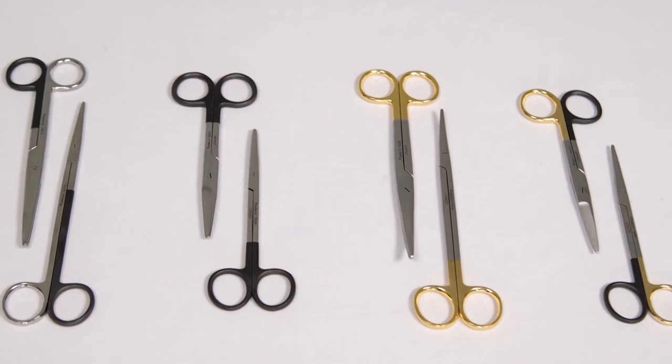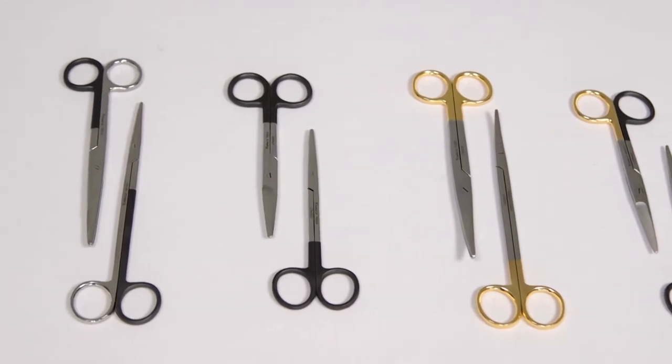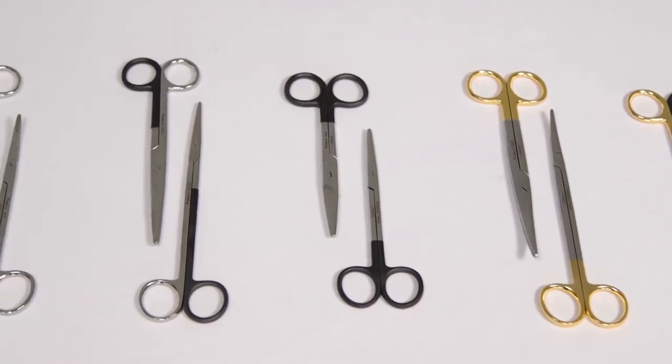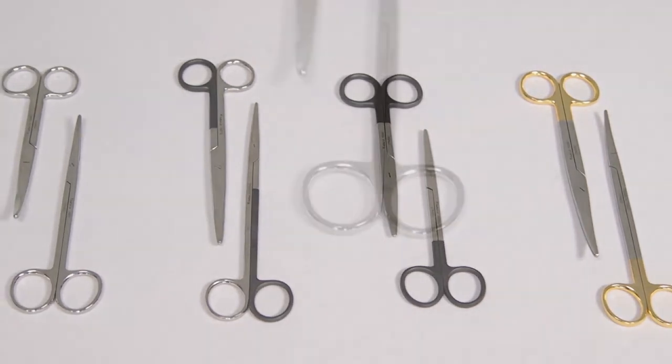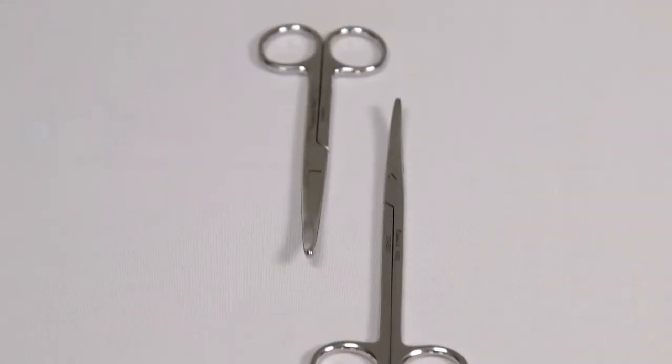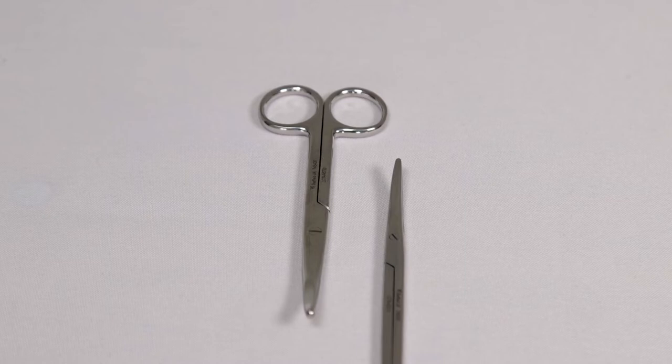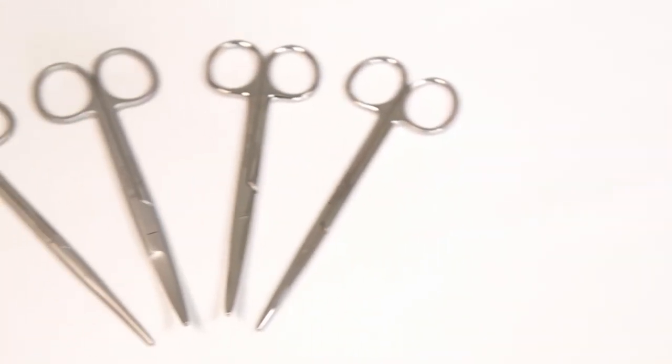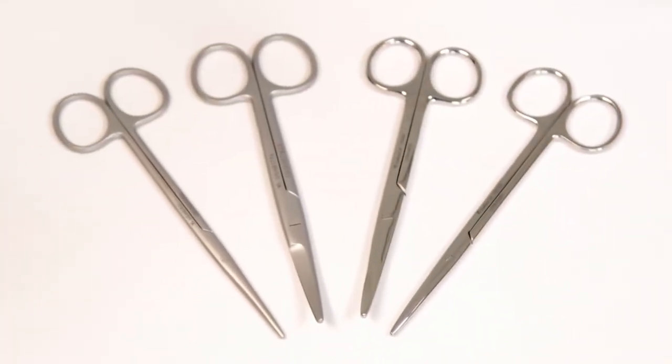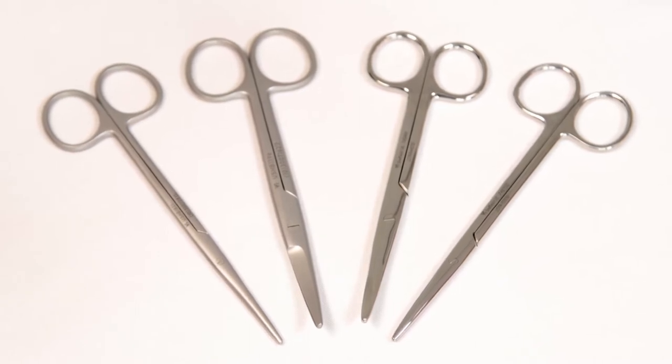Both types of scissors have five different blade characteristics to choose from, denoted by the colour of their handles. Standard stainless steel scissors have two silver handles and usually have a highly polished mirror finish. A matte brushed satin finish is also available in some designs.